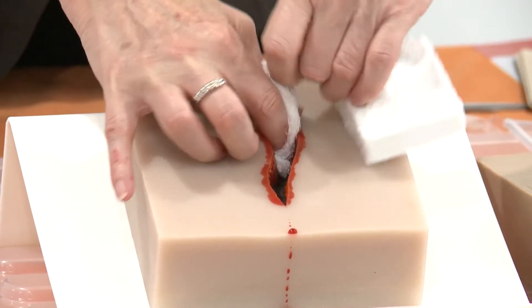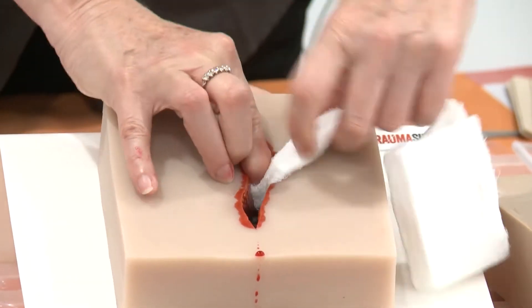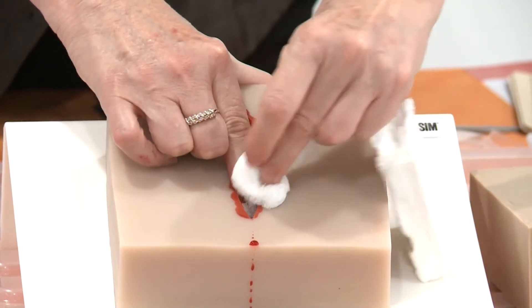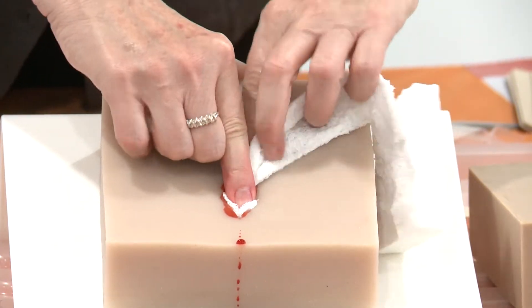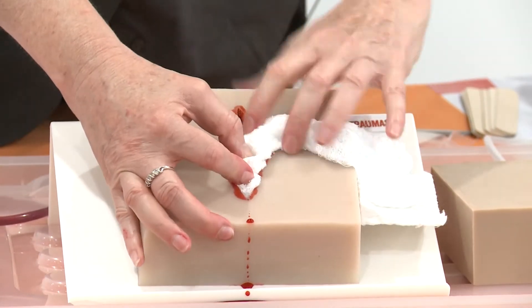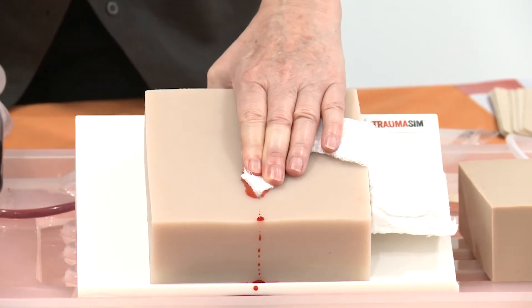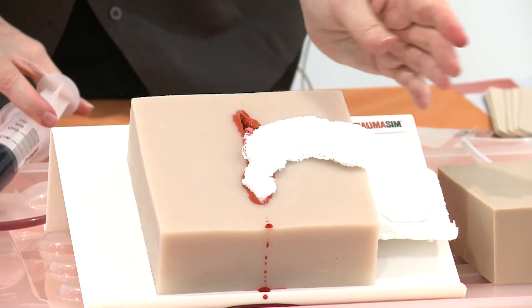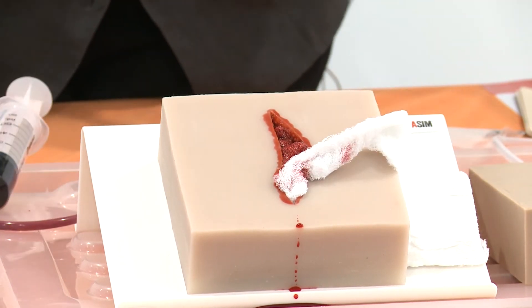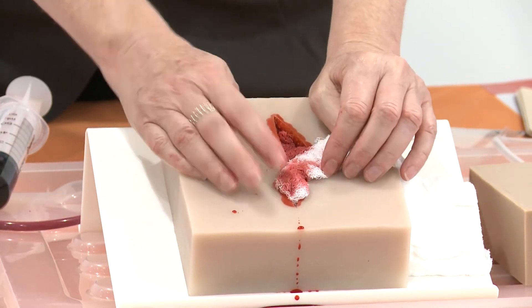And then they can start packing that. The nice thing about the silicon is that it's very stretchy — you can squeeze quite a lot in there and it'll take that up, so you can keep doing your whole lesson like that, get the pressure on and do all of that. If you want to release it, take the pressure off and show them that if they don't keep the pressure on, it keeps bleeding. You can get all those messages across: the goal is to get it packed, fill the cavity, keep the pressure on, and what happens when you don't.